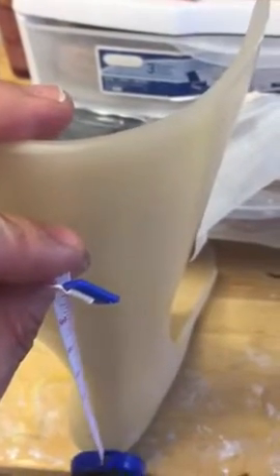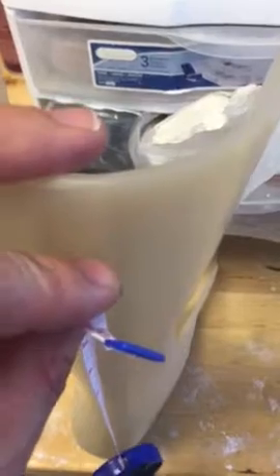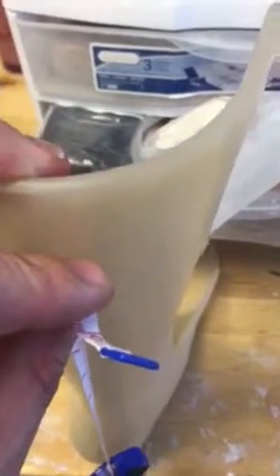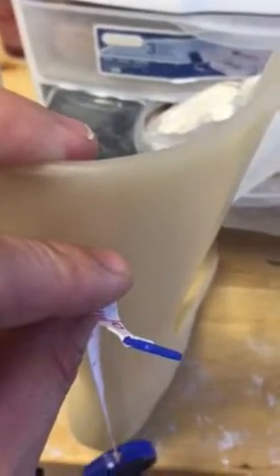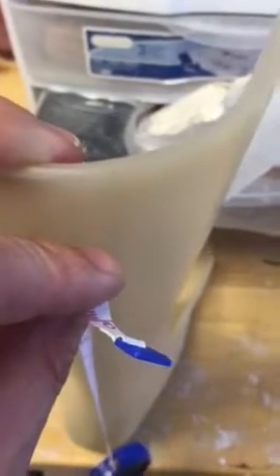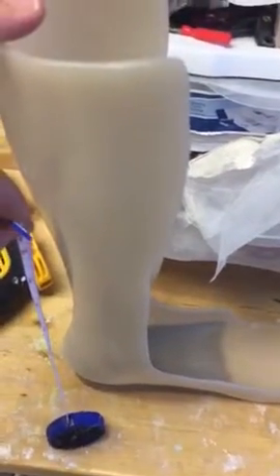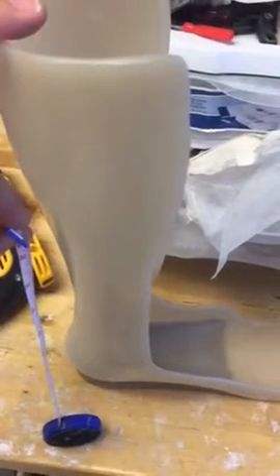Three sixteenths inches is the thickness that Ranella Orthotics and Prosthetics typically uses with patients. We usually use a plastic called polypropylene, which is a plastic that is strong enough to encounter the floor as it has a ground reaction force back up into the brace.